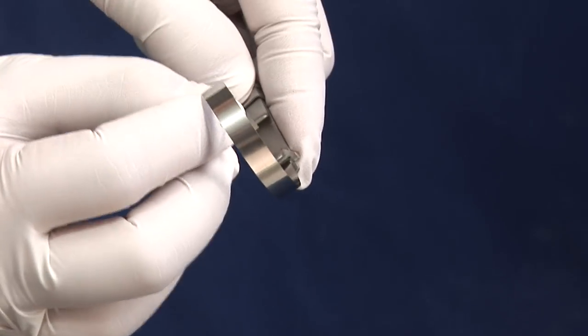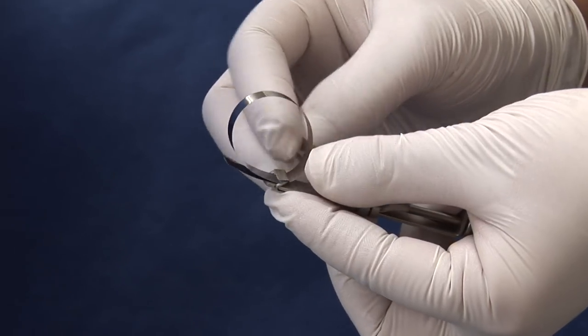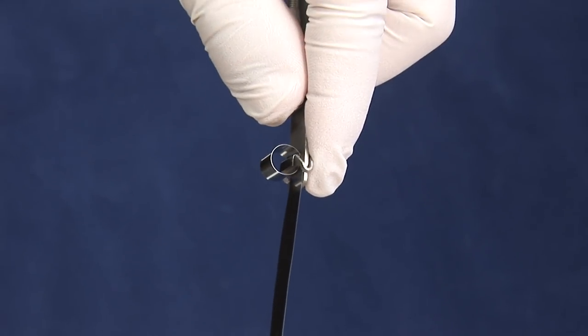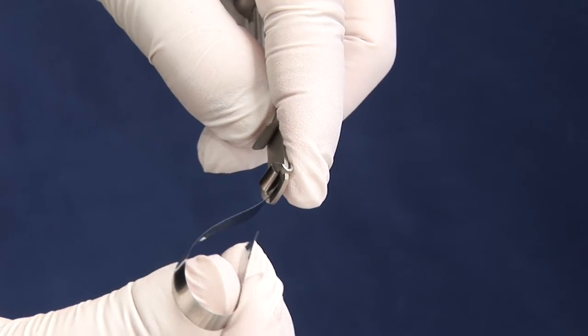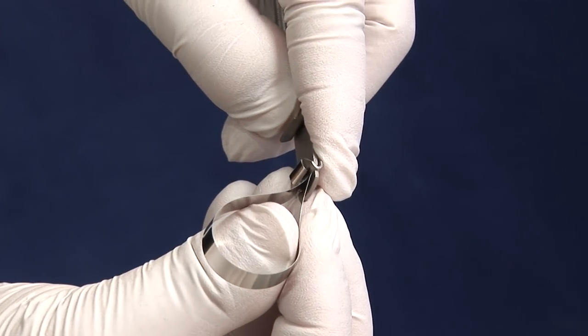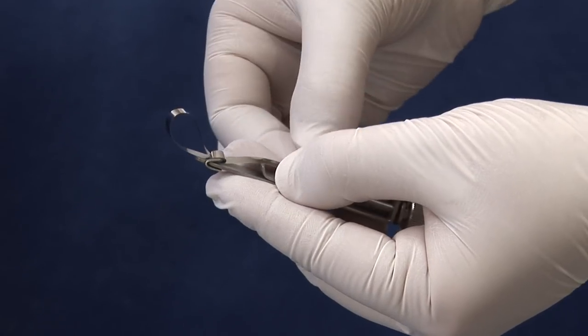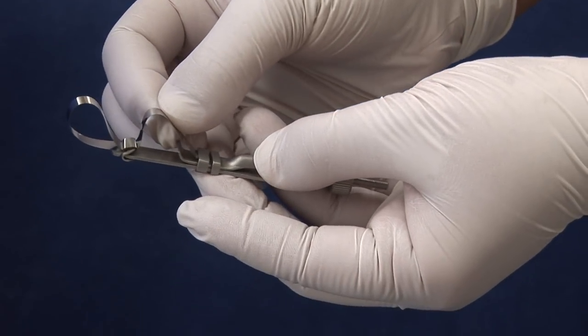Then turn the matrix band over and take the matrix band under the latch from the top. Pull through and thread the matrix band back through the latch. Pull through and thread the matrix band through both locks.